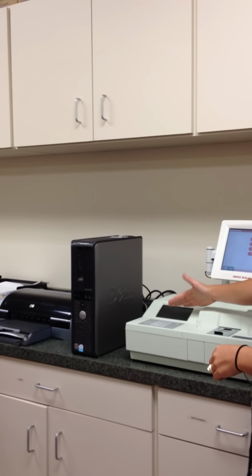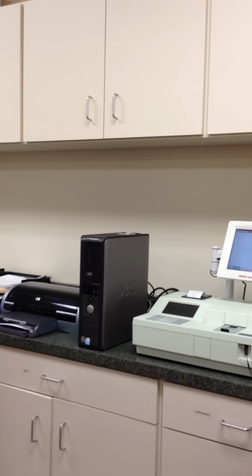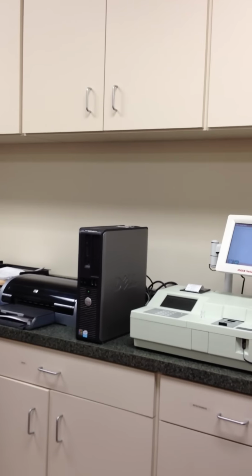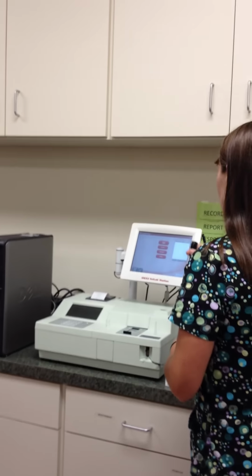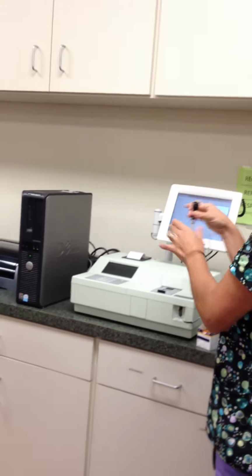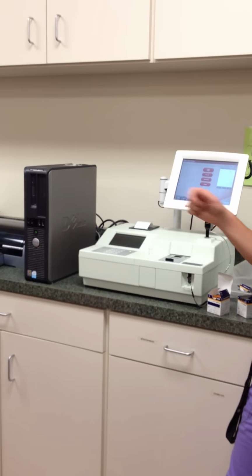All right, and now it's telling me my next steps. So it says remove probe, insert tip onto probe, press on firmly, and replace probe. Here's your probe. You think I've done this a couple times, I probably said it word for word. That's bad. That should never be there. Okay? Take your probe out, take your new tip, place it on, push it on firmly, set it here, press enter. Now it says lower your tip into your sample, press the button, and you're going to press and release.